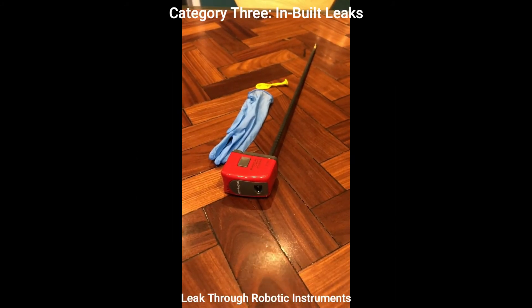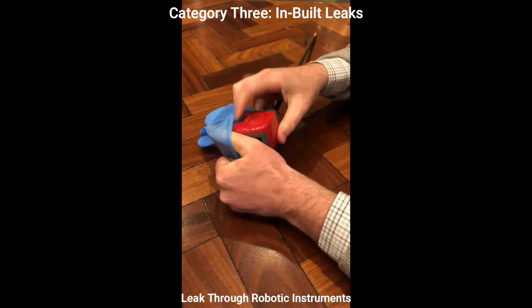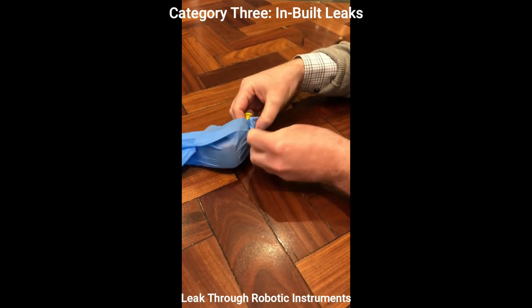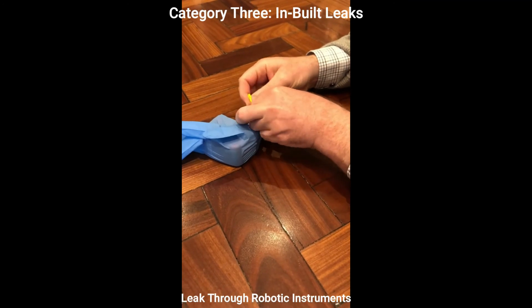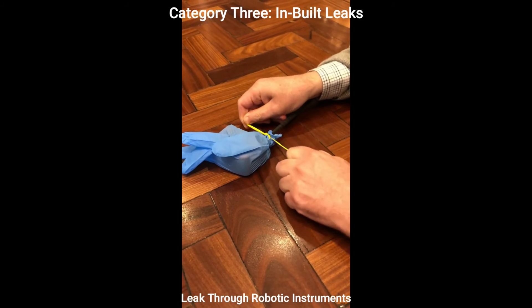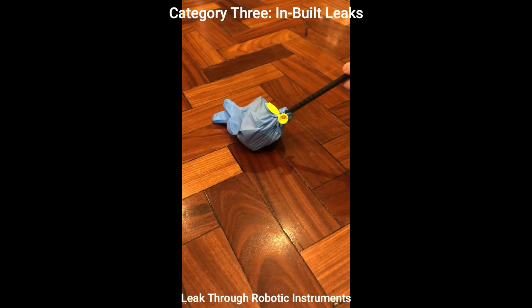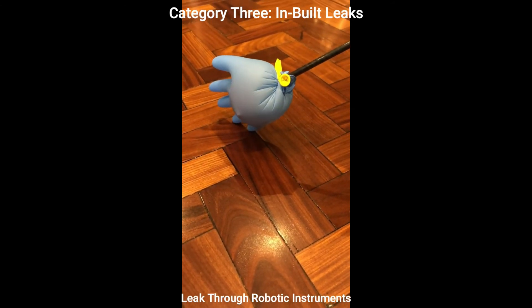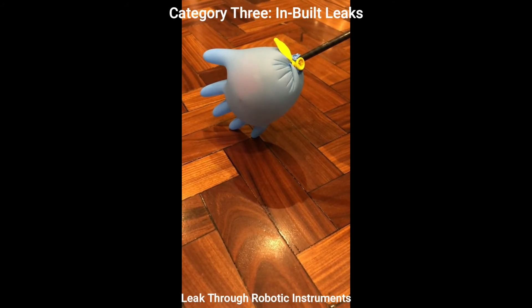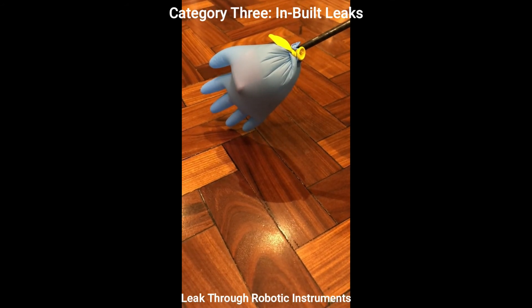Robotic instrumentation leaks gas through the instruments themselves, as we show here in this simple and reproducible test. First, a glove is placed over the instrument head and tied in place. Next, a gentle positive pressure is applied to the instrument tip. After cessation of insufflation, you'll see gas leaks back through via the instrument tip.